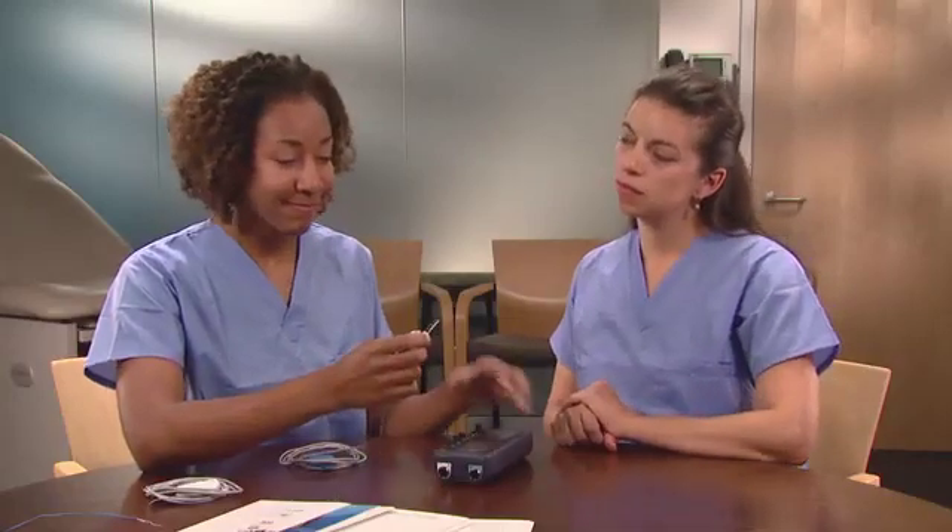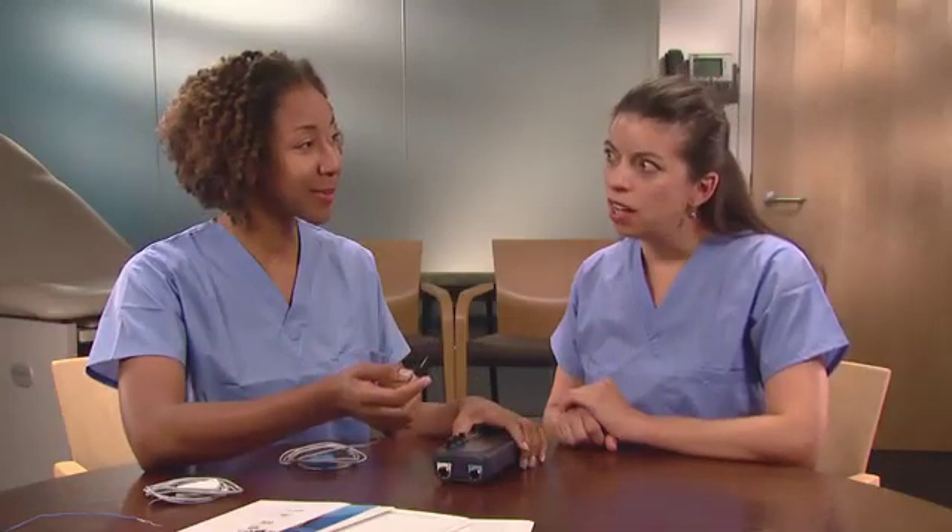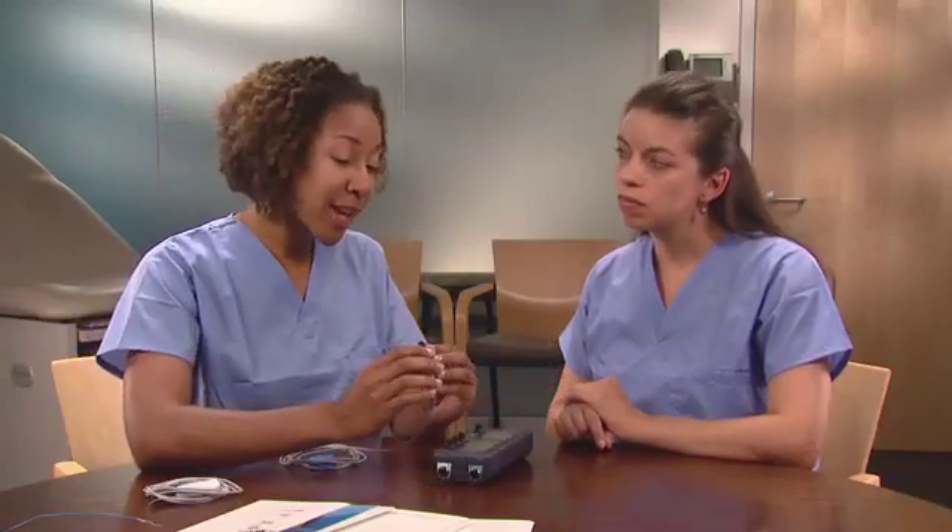How long is the typical battery life? With continuous operation at nominal values, the battery will last for a minimum of 7 days. Now confirm that the set of patient or surgical cables is compatible with the connector block. Here's an example of a compatible connector plug. The connector block does not support direct connection of heart wires or exposed electrical connectors. Now that you have the correct cables, inspect the cables and leads for possible defects.